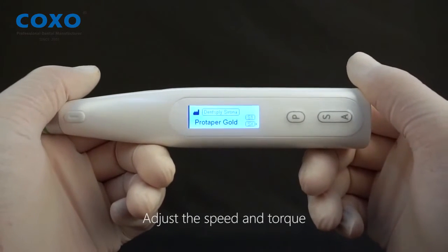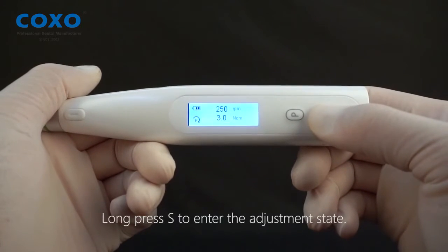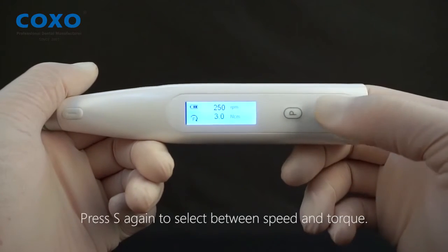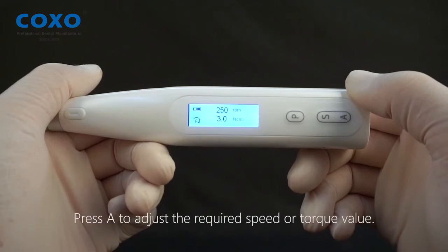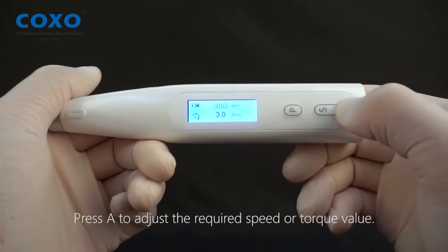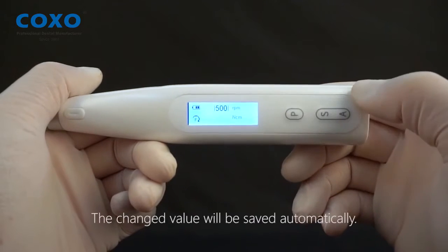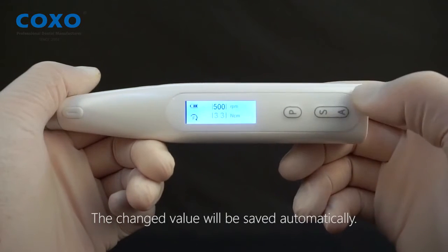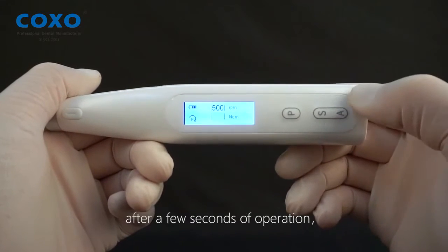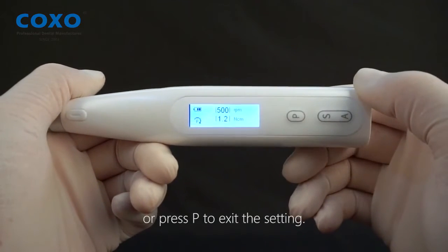Adjust the speed and torque. Press A to adjust the required speed or torque value. The changed value will be saved automatically. The device will automatically exit the adjustment state after a few seconds, or press P to exit the setting manually.